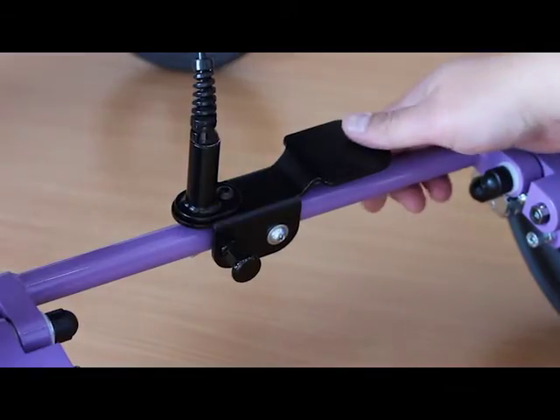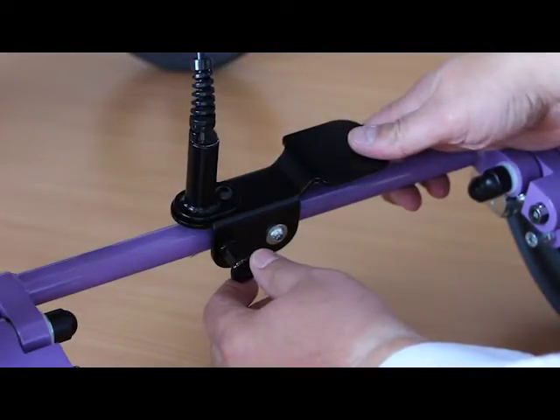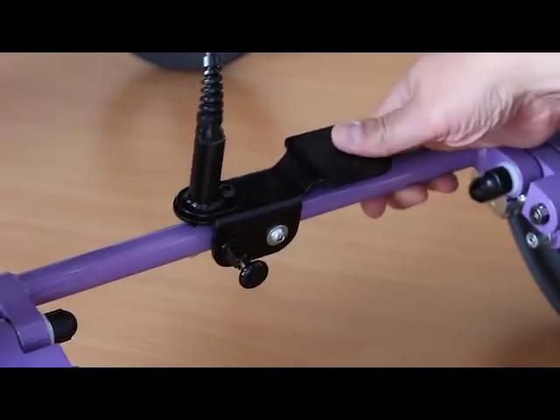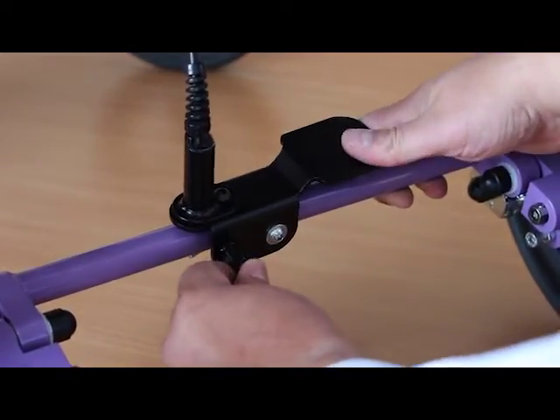Here's a close-up view of the tilt pedal. It has a lock on it which protects from any inadvertent operation during transport. To release it, you pull the pin out and rotate to lock it out, and then the tilt pedal will work freely. When going into transport, click it back on to ensure it's engaged.